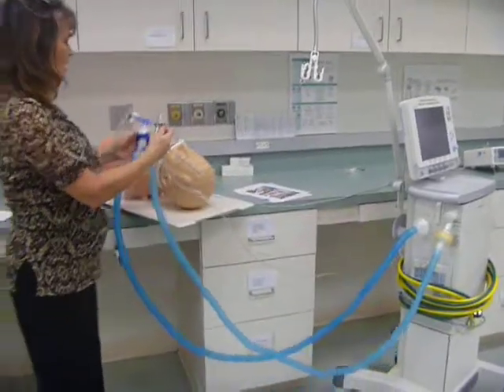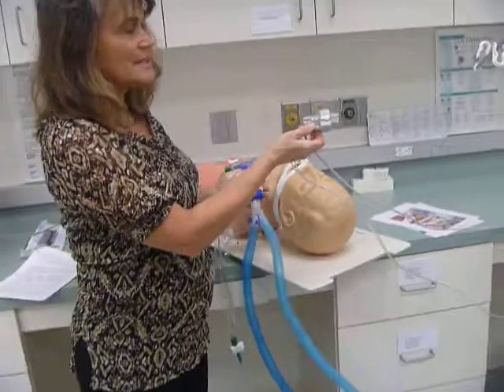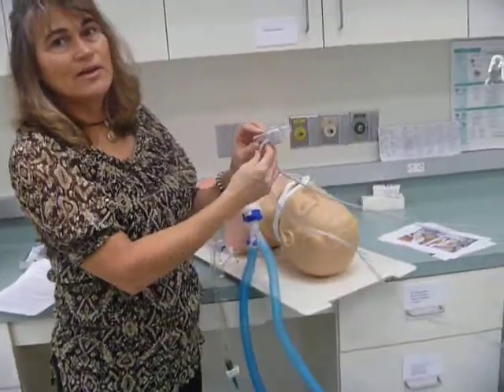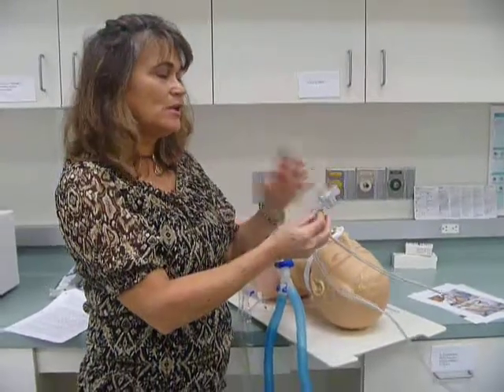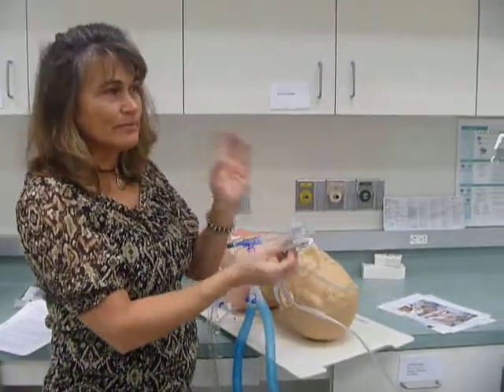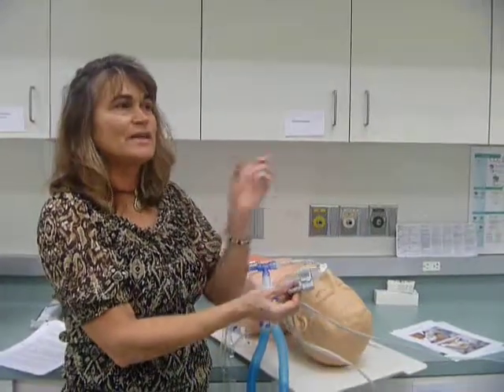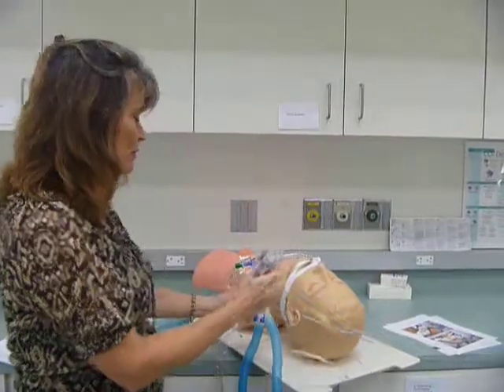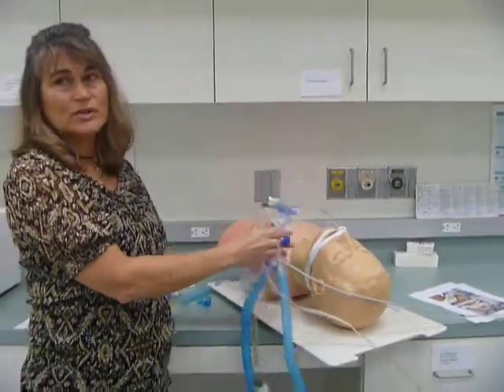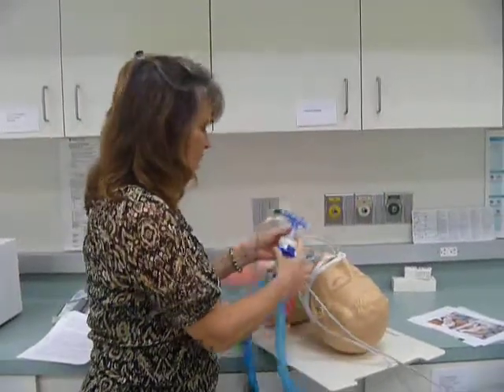Alright, so putting it in line. If I put it near the patient, then the moisture gets in here, secretions get in here, and then it stops working after like 6 hours, 8 hours. And then you have to take it out of line. You high-level disinfect it, or you send it for sterilization, and then you put a clean one in. However, if you put it behind the heat and moisture exchanger, then it's going to stay dry, and you're not going to have to change it as often.